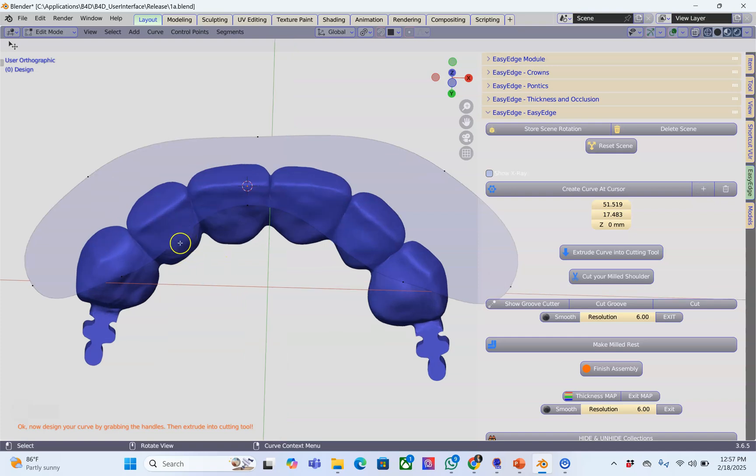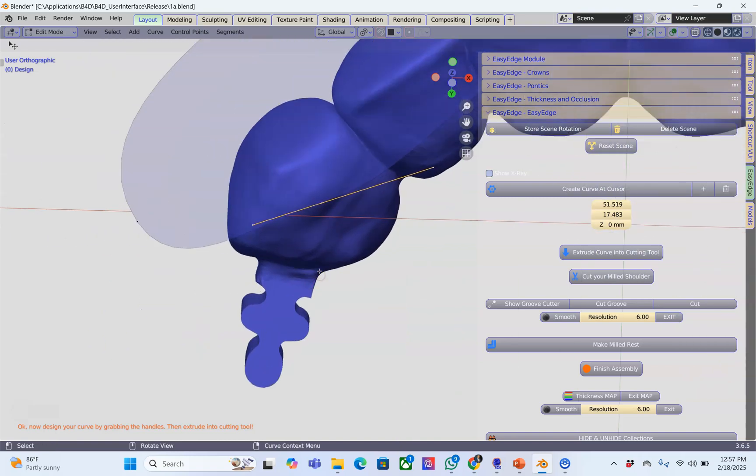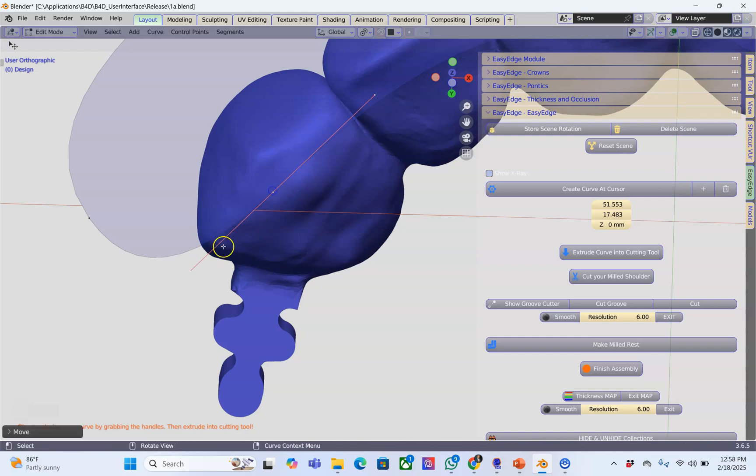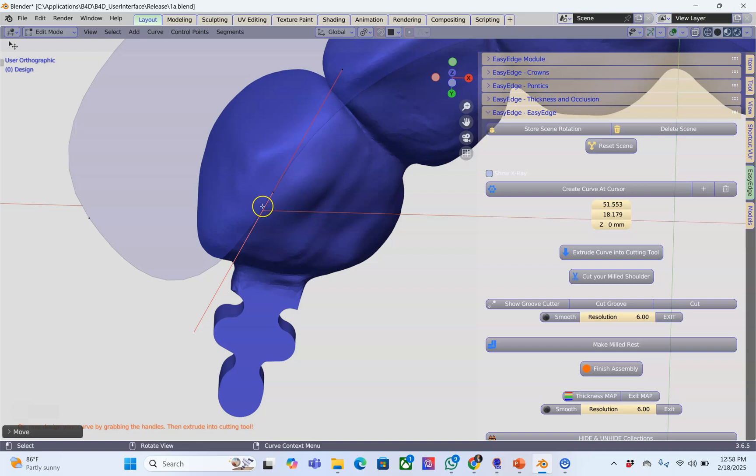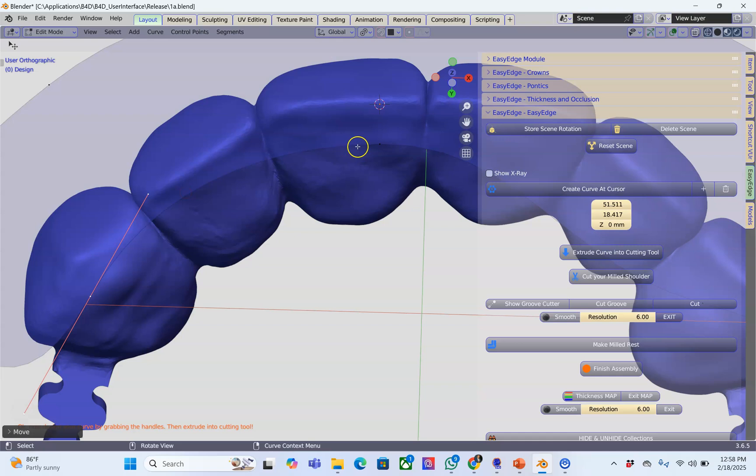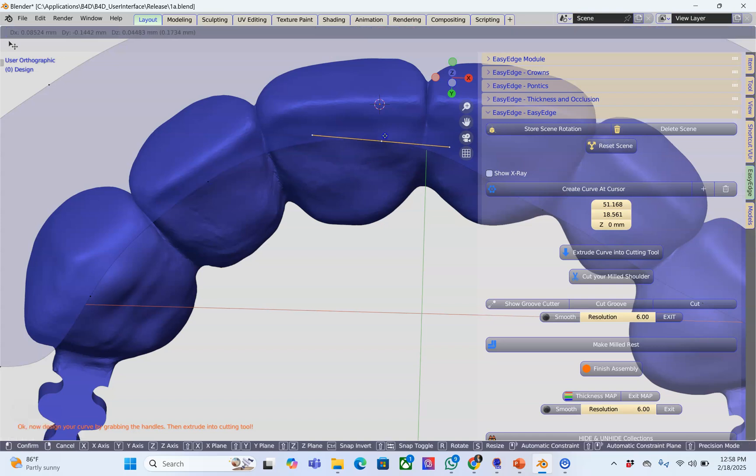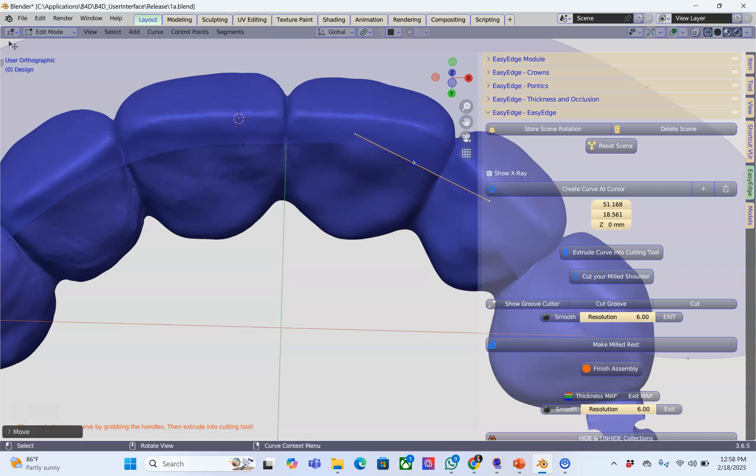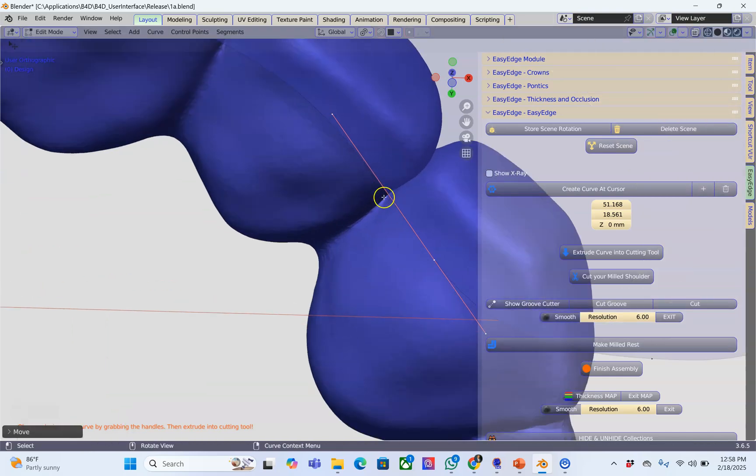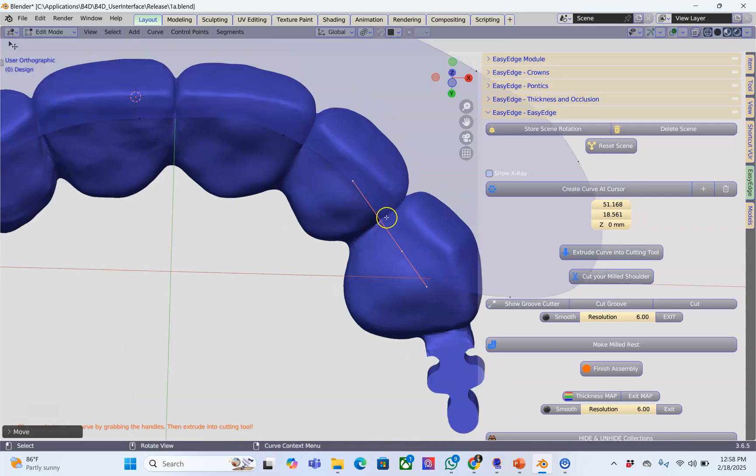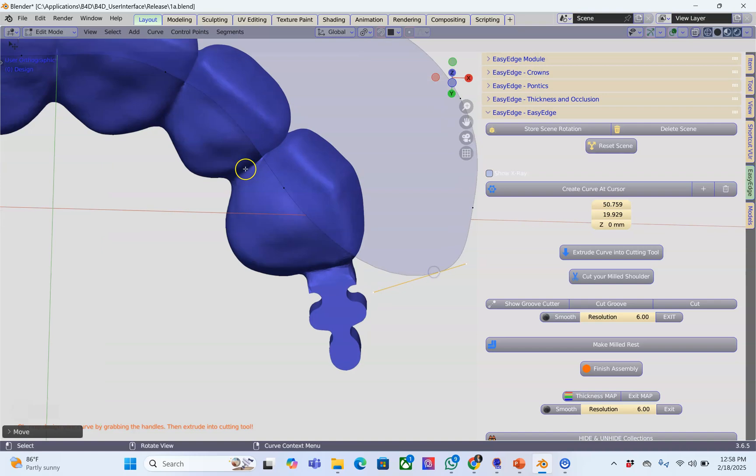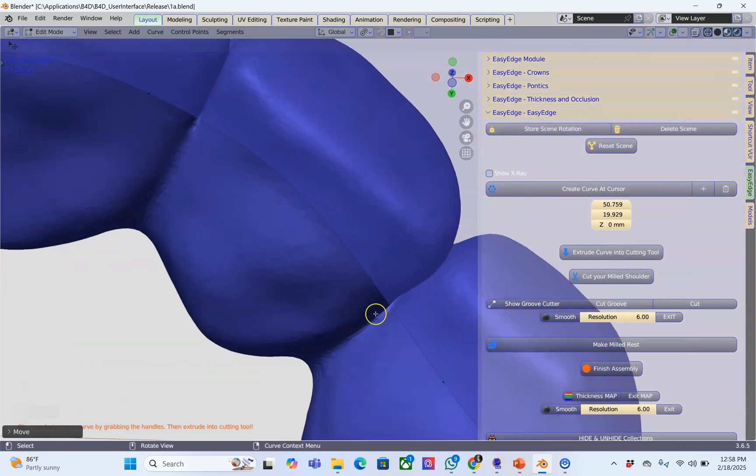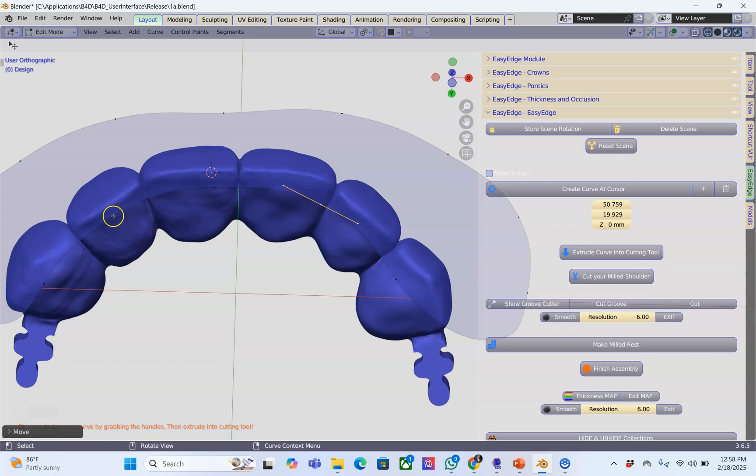You'll notice that'll double all of these. Here I'm going to zoom in and we want to just get the labial surface only. It's going to cut across like that and I'm going to click A and click on plus one more time to increase the number of vertices. Here I'm going to chop away all of this. This takes a bit of careful planning and thinking. Be careful of your mesh structure. The Boolean sometimes can cause issues if it is overlapping. When you design these bridges make sure to smooth the interproximal contact areas a little bit better than this bridge. It's very important.